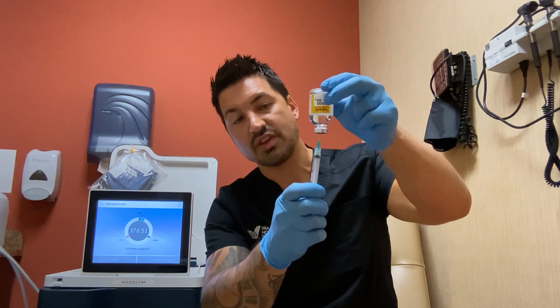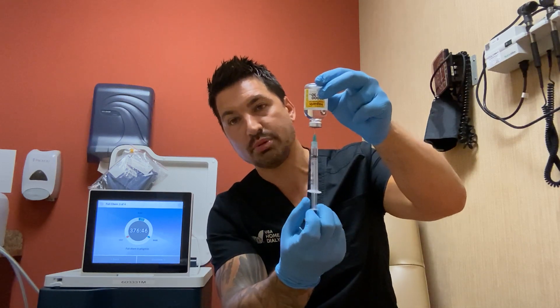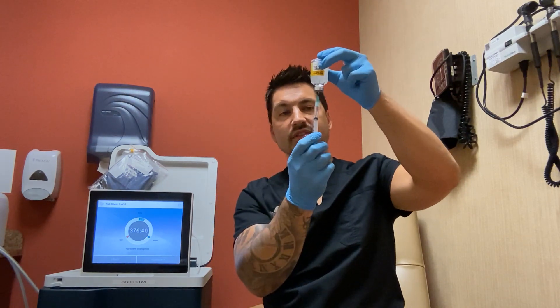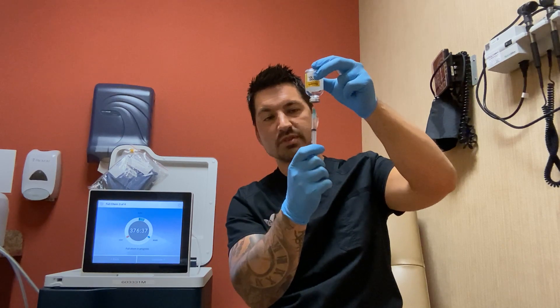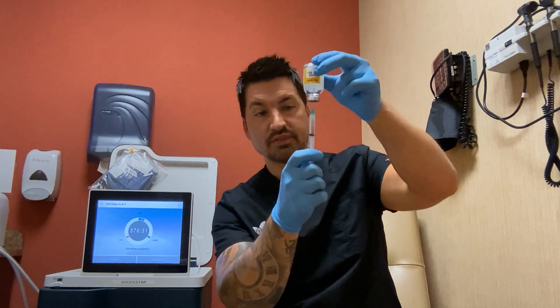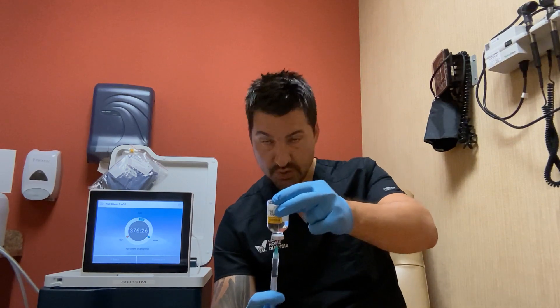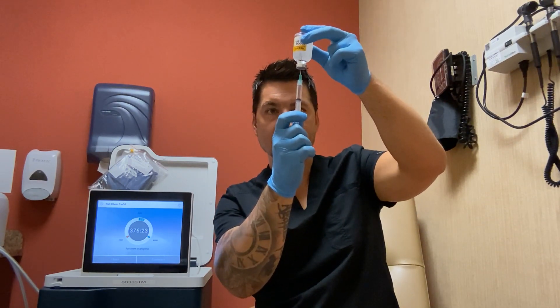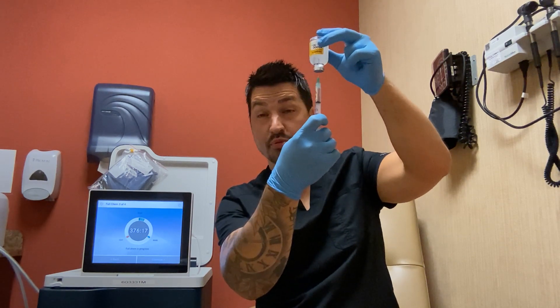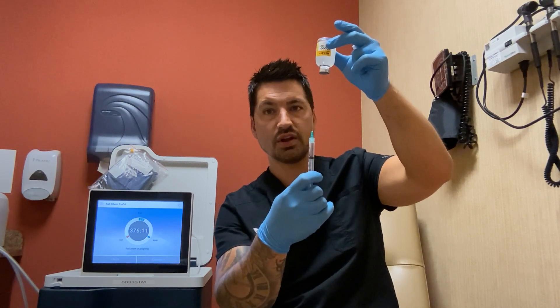Let's say the order for today's CVC lock is 1.6 ml. Pull back on the plunger all the way down to 1.6. Keep in mind, you want this syringe and medication setup to be completely vertical — straight up and down. Don't angle it. Get at eye level — don't try to read your medication from down here. Get it at eye level, and once you're at 1.6 or your appropriate volume dose, pull straight down on your needle.